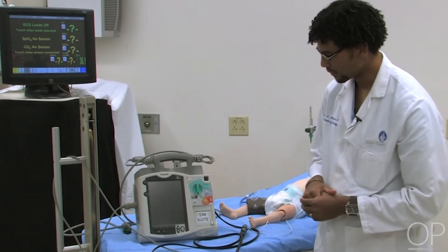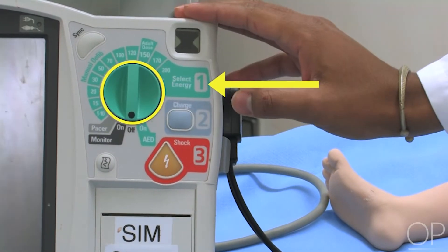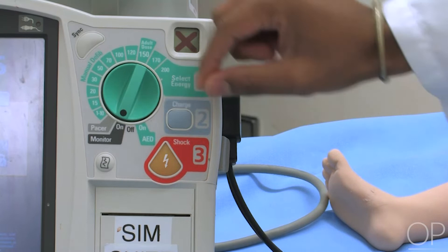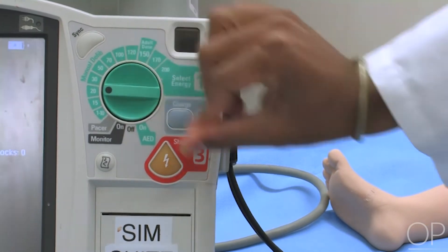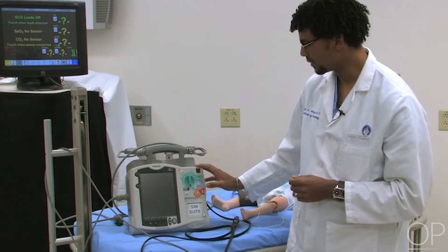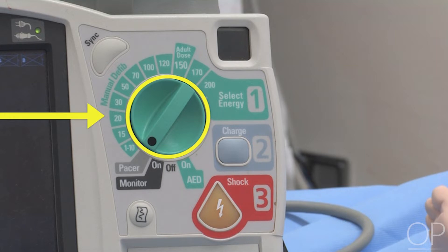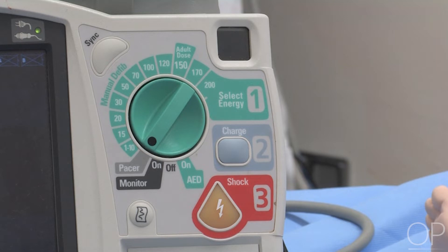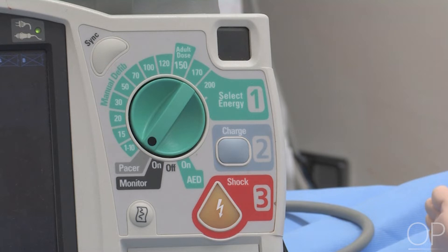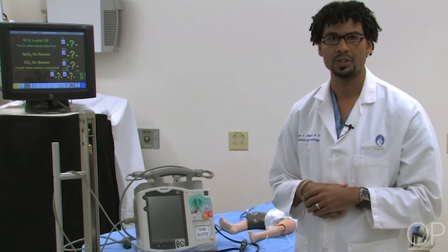Moving to the actual box itself. The key feature is the large knob in the centre, which allows us to select energy in joules to deliver to a patient. Once the machine is turned on, you rotate the knob to select the appropriate energy level based on your patient's weight. You then select the charge button and wait for the machine to signal it's charged — either an audio cue or, on our machine, the shock button lights up. It is the responsibility of the person delivering the shock to ensure that everyone is clear of the patient before the shock is delivered.